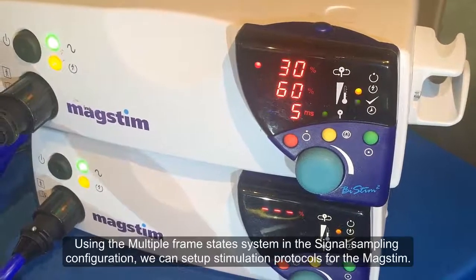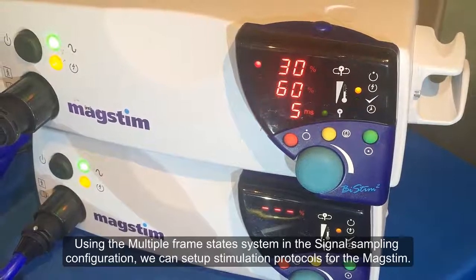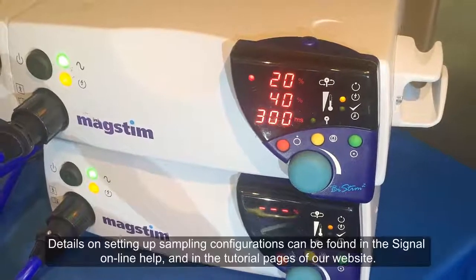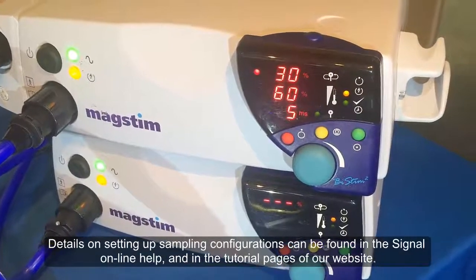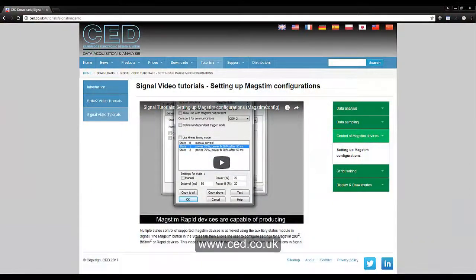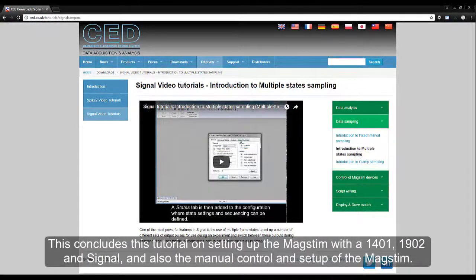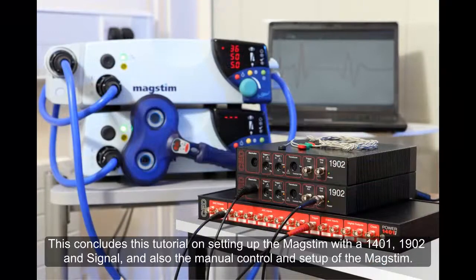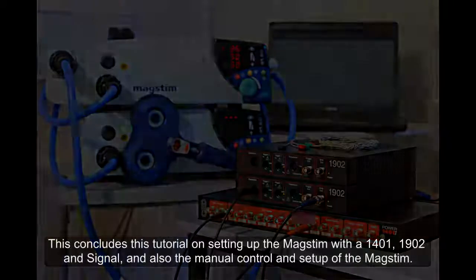Using the multiple frame state system in the Signal sampling configuration, we can set up stimulation protocols for the MagStim. Details on setting up sampling configurations can be found in the Signal online help, and in the tutorial pages of our website, www.ced.co.uk. This concludes this tutorial on setting up the MagStim with a 1401, 1902 and Signal, and also the manual control and setup of the MagStim.